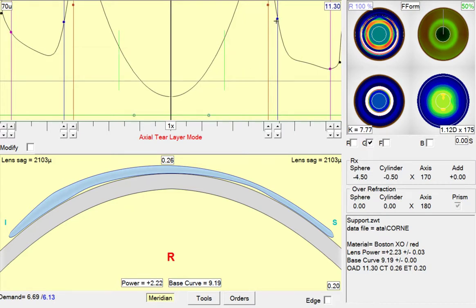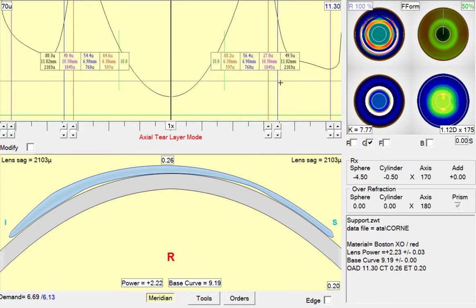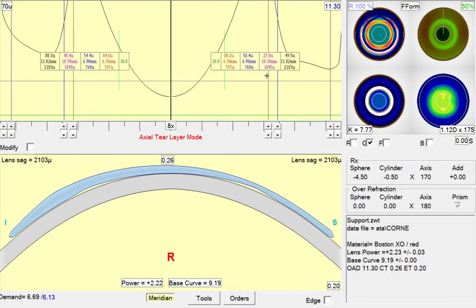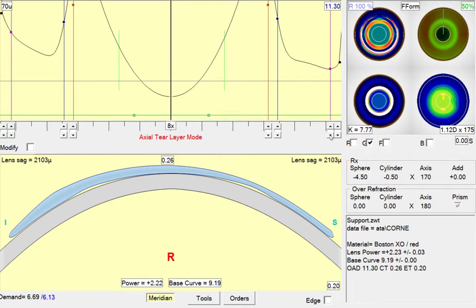And now we're at 768. So now at the blue control point, we have the same sagittal depth of the lens as the R-SIM lens. So again, this shifted the edge point, so we're going to return that back to where it was before. And I blanked a little bit. I think it was 1864. If I remember correctly from 15 seconds ago.